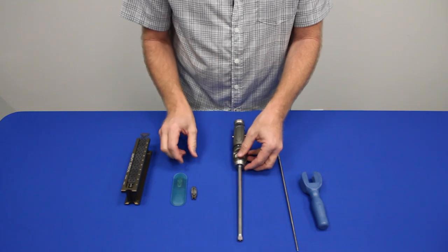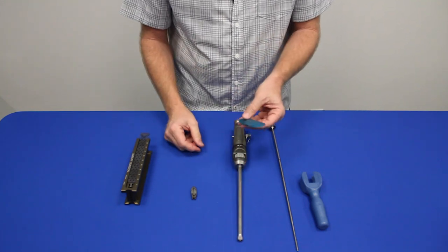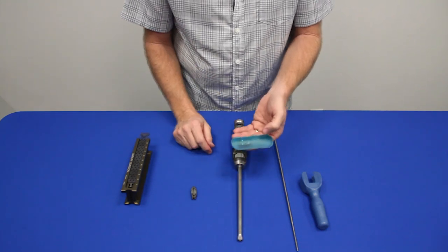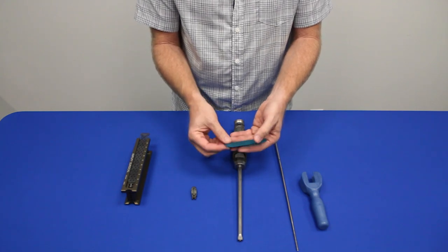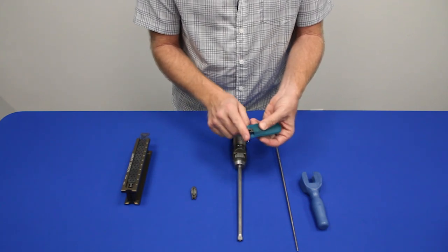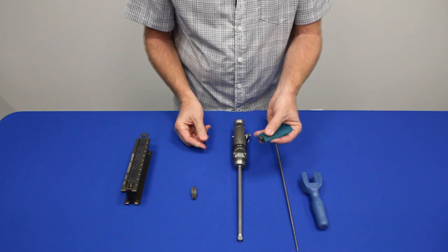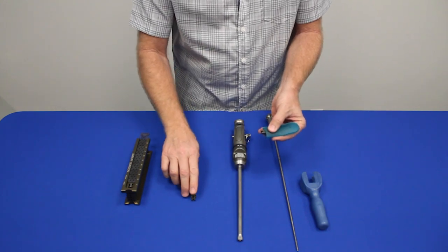Once you've determined the height requirements of the implant, you go ahead and select it. When it's sterile, it comes in a pouch. I want you to have the Scrub-Tec fold back the blue pouch and expose the tail of the implant.